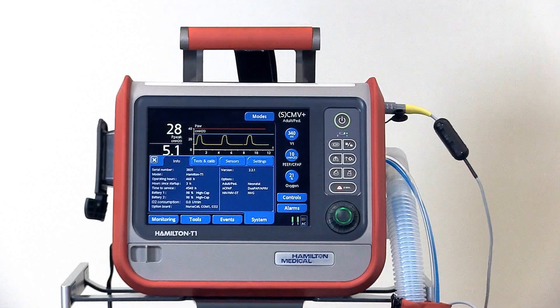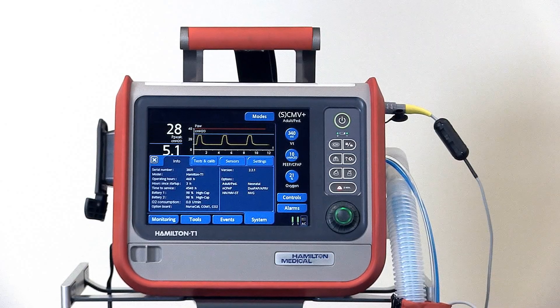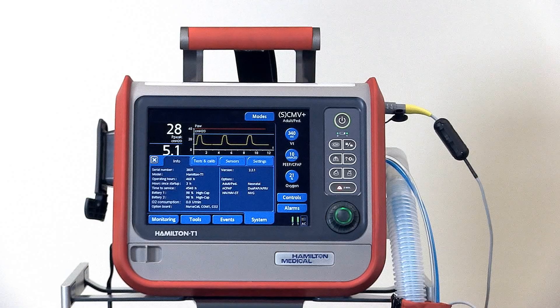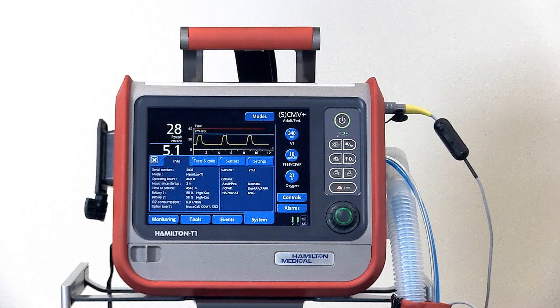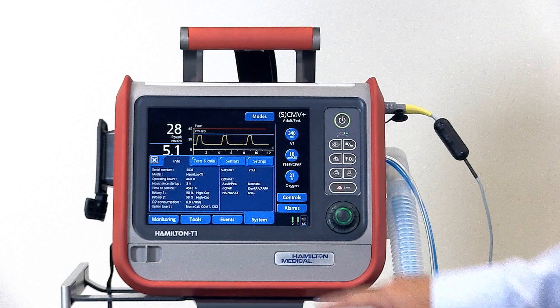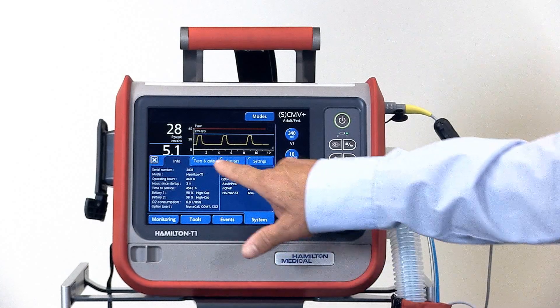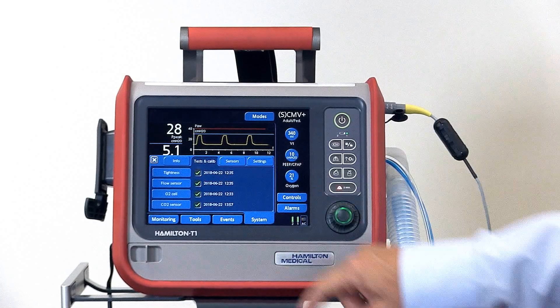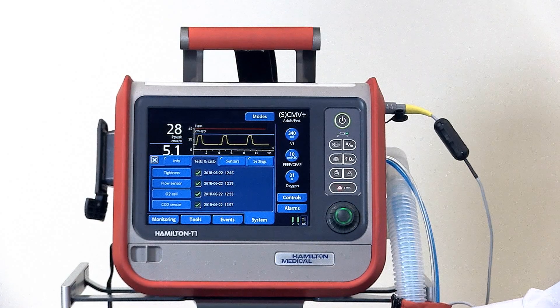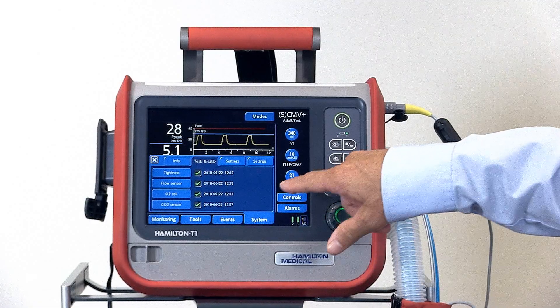This is the system tab where you can find various ventilator information such as the serial number, software version, and installed options. In this window there's the tests and calibrations window where you would do the pre-op check or set up the O2 cell or CO2 sensor for use.